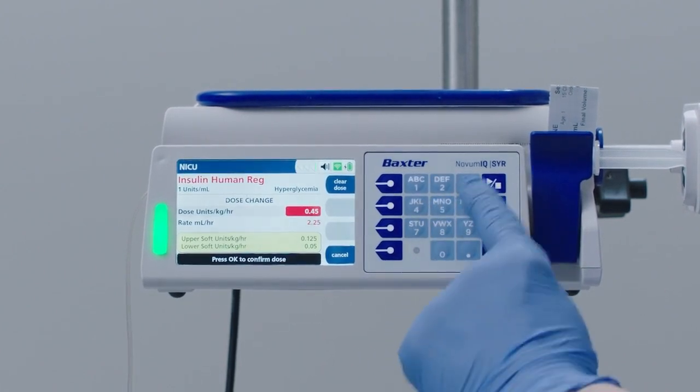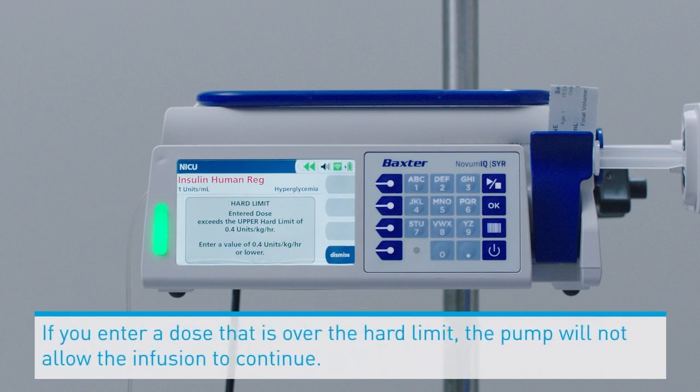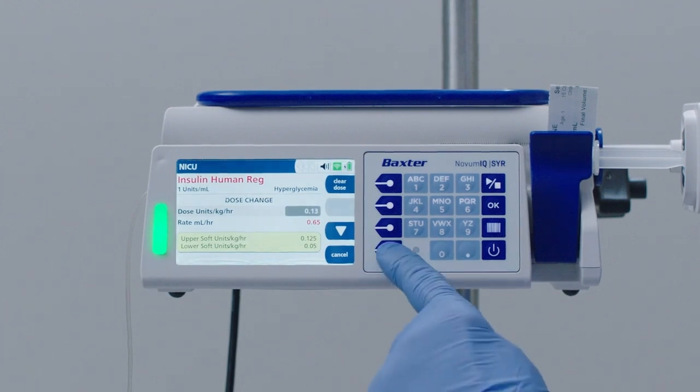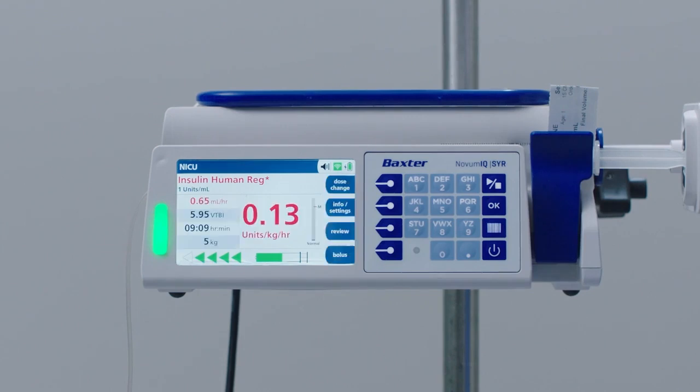Press OK. Because this dose exceeds the hard limit, the upper or lower dosing limits that are set in the drug database and cannot be overwritten, the pump will not allow the infusion to continue. Press the Dismiss soft key to return to the screen and re-enter a dose rate within the hard limits defined in the drug library, or press the Cancel soft key to resume at the previous dose rate.